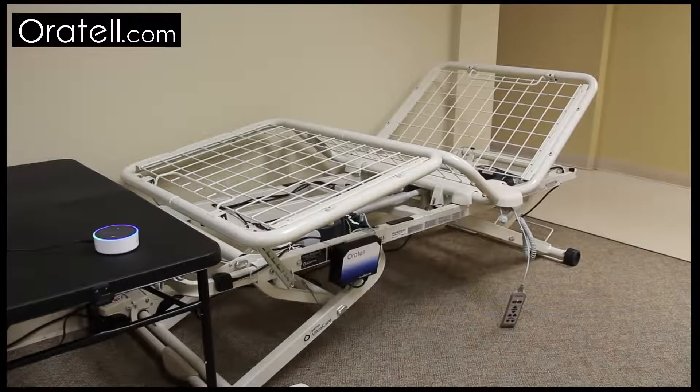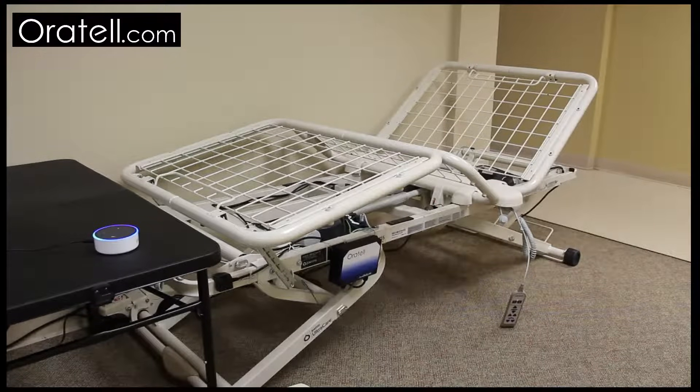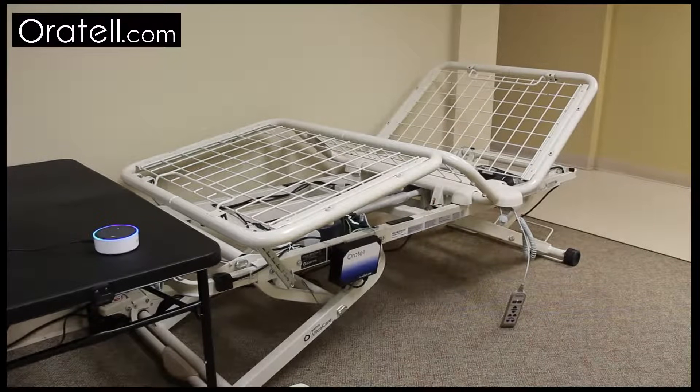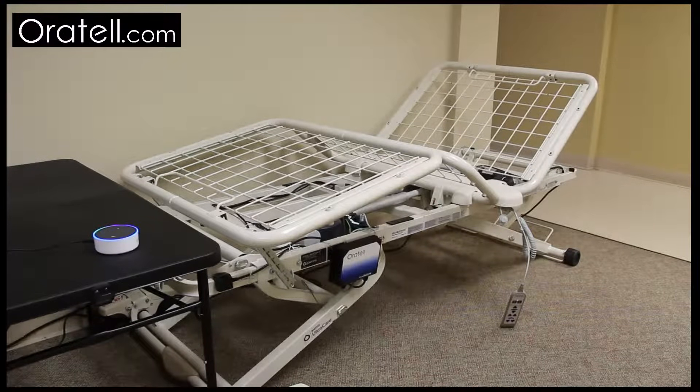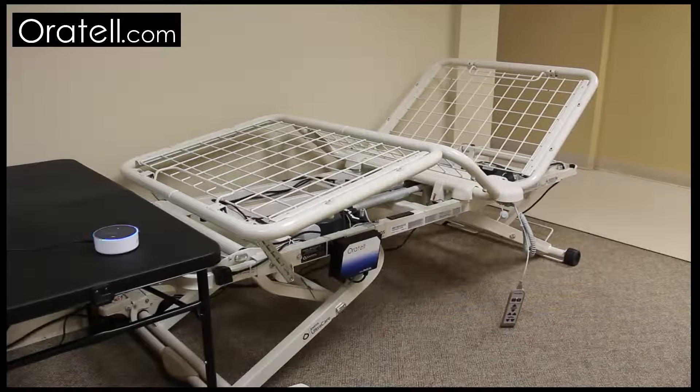Alexa, tell bed control, raise the bed up, 1. Raising the bed up, 1.